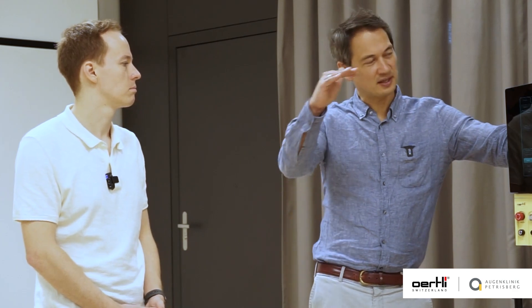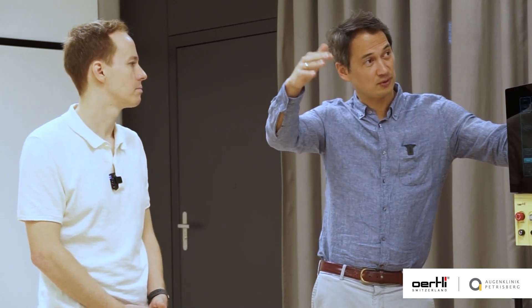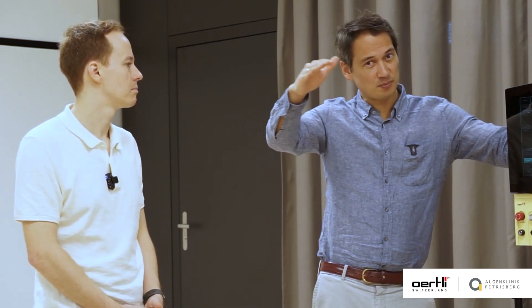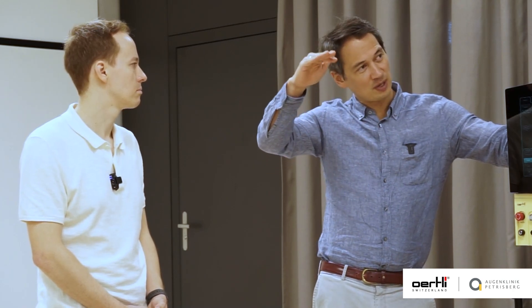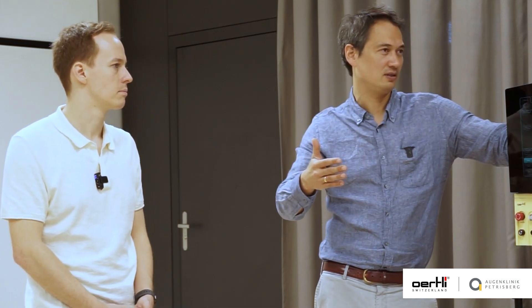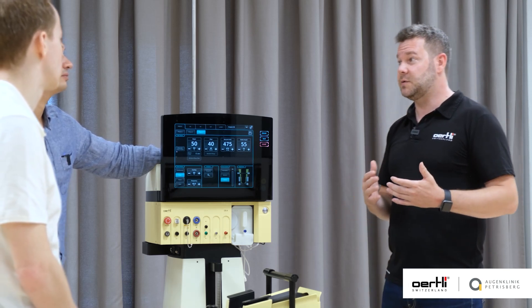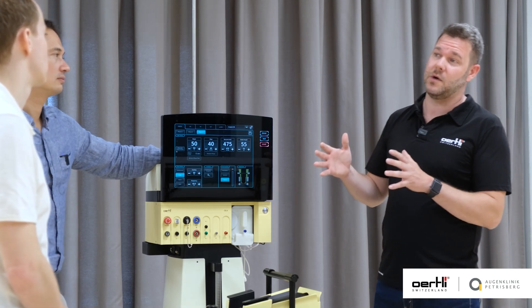Start with a peristaltic pump and low flow, then increase the flow later if you want to be more aggressive or effective. On the Venturi pump, the vacuum defines the flow — higher vacuum also generates higher flow. We'd love to hear your comments on which pump systems you're using and whether you're aware of the differences.